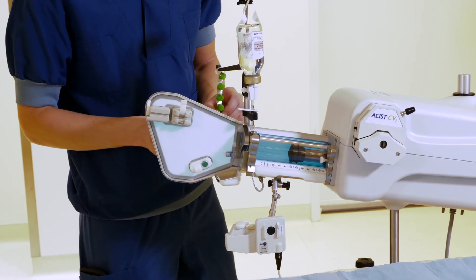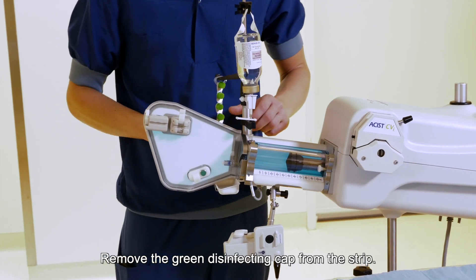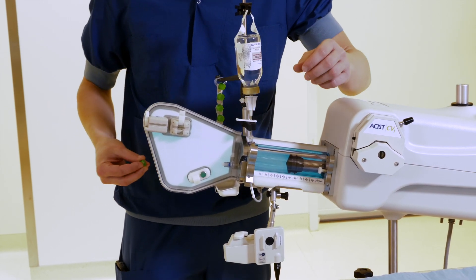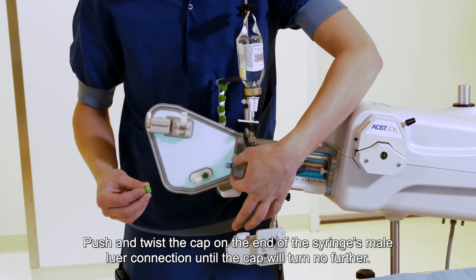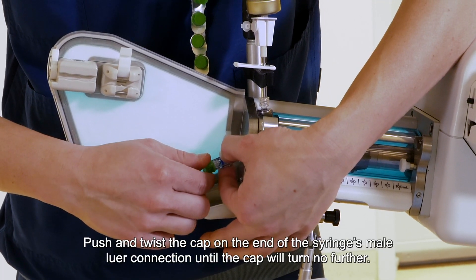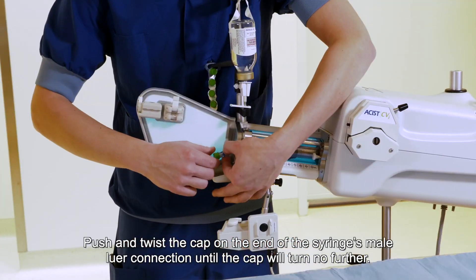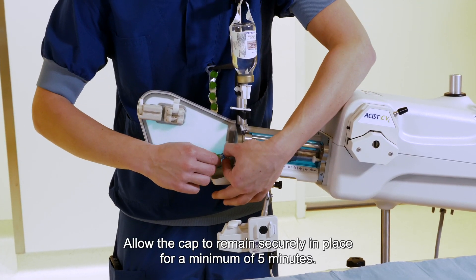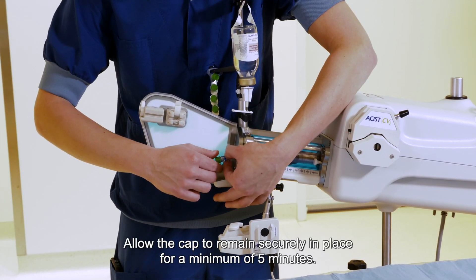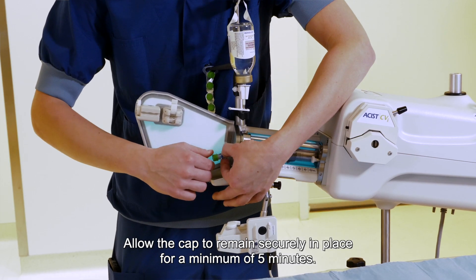Remove the green disinfecting cap from storage. Push and twist the cap onto the end of the syringe's male luer connection until the cap will turn no further. Allow the cap to remain securely in place for a minimum of 5 minutes.